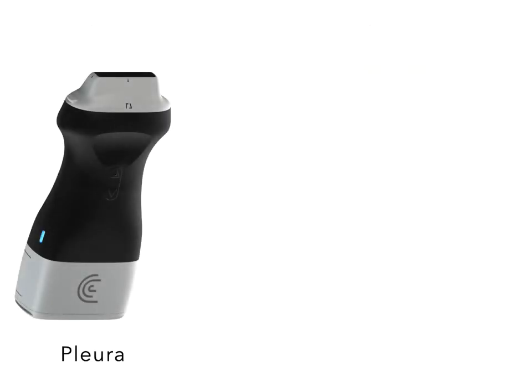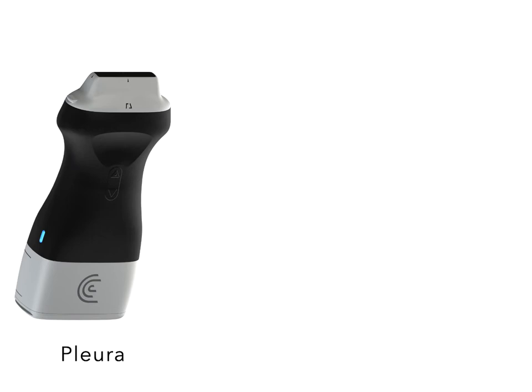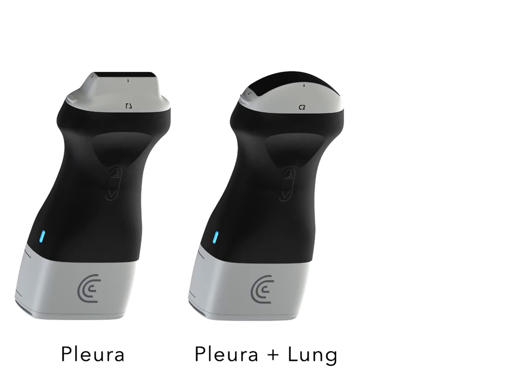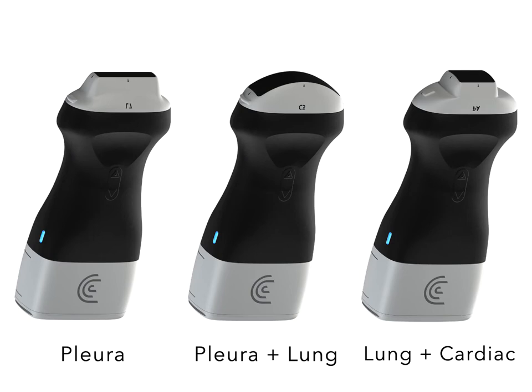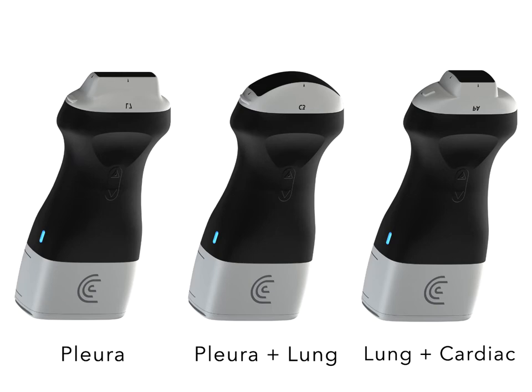You can effectively use almost any probe to scan the lungs. A high-frequency linear probe is great for scanning the pleura because it's better at visualizing superficial structures, but it does poorly at looking deeper into the lung. A low-frequency curvilinear probe is effective at looking at both the pleura, provided you adjust your depth, as well as looking deeper into the lung. A low-frequency phased array probe is effective at visualizing deeper aspects of the lung, but doesn't provide fantastic imaging at the pleura — however, it has the versatility of performing both cardiac and lung imaging.